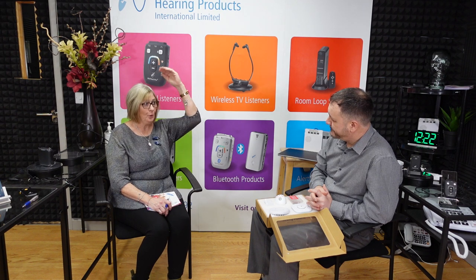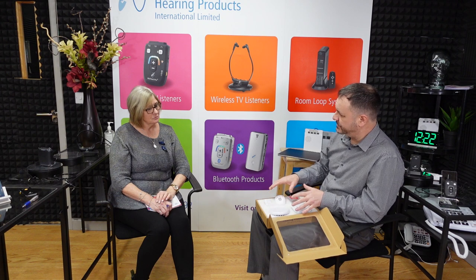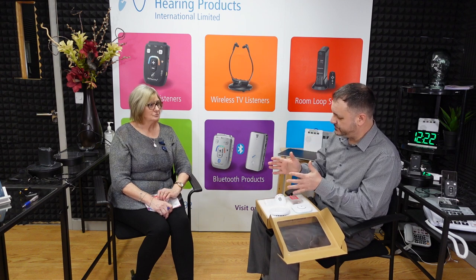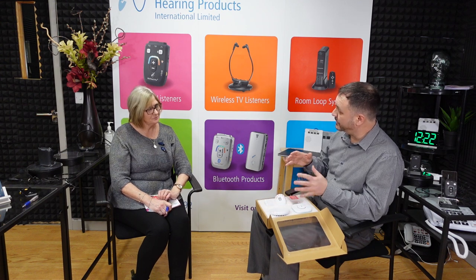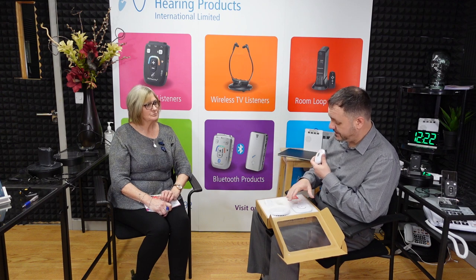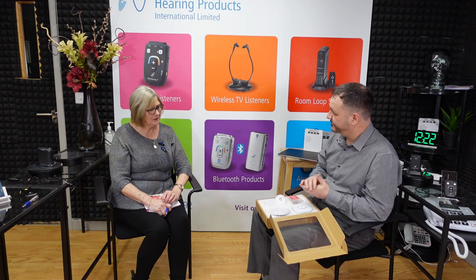What if you had a townhouse with more levels, or a flat — how many units would you need? It depends on how many you want for your home. You can pair other units to one pager, so you can have more than one smoke alarm paired to a single pager. Currently we sell these as packs, not as individual units. The wireless range between units is 100 metres, so a smoke alarm downstairs would very likely be picked up upstairs. With the sound sensor placed next to another existing alarm, you effectively have two alert systems.